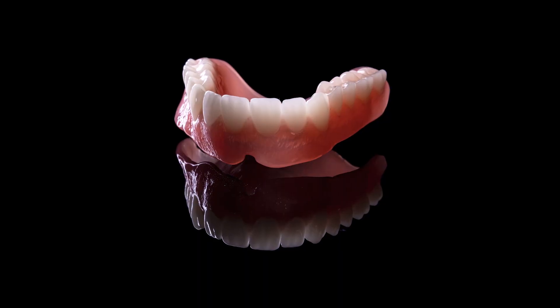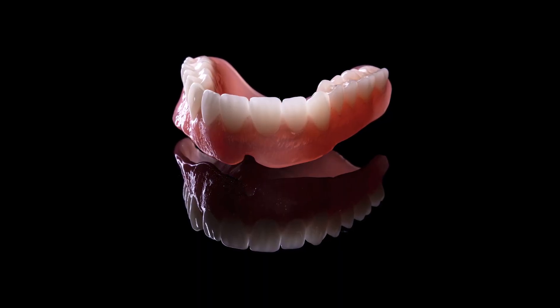You see the striations going vertical and horizontal on these anterior teeth. The light will definitely reflect and refract similar to a natural tooth.